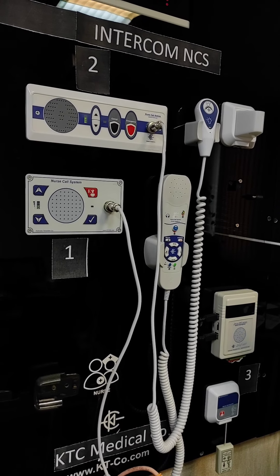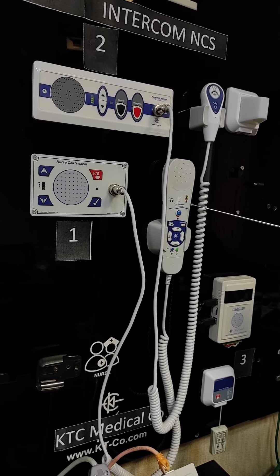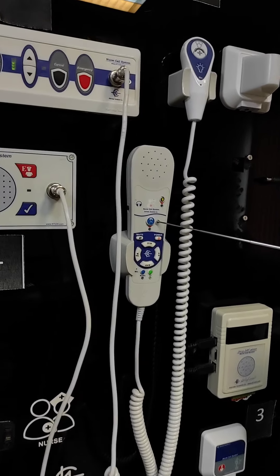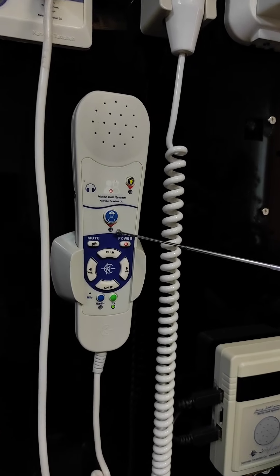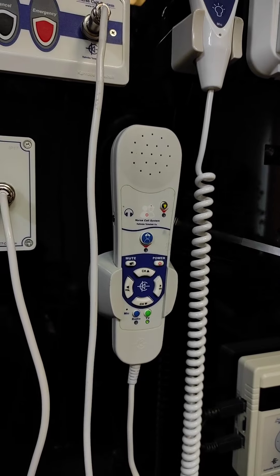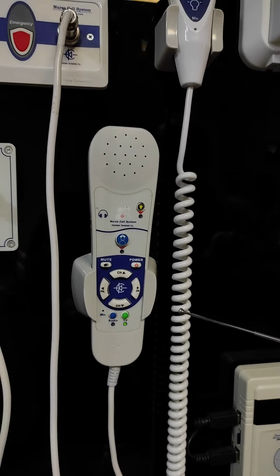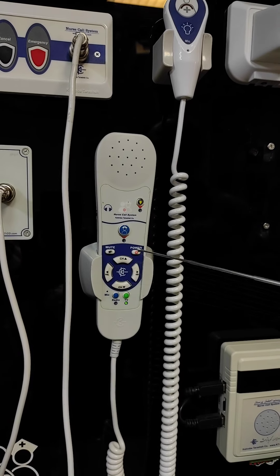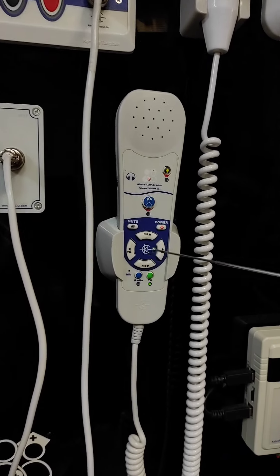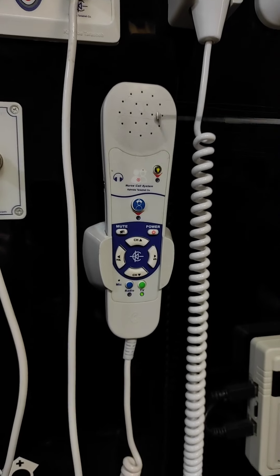On the patient's handset, we have the same features — the turn off and on of the study light, the nurse call button with a back-illuminated LED that shows connectivity and also helps the patient to find the handset easily during the night. We also have a membrane keypad to control TV channels or radio, a 5mm jack for headphones, and a speaker.